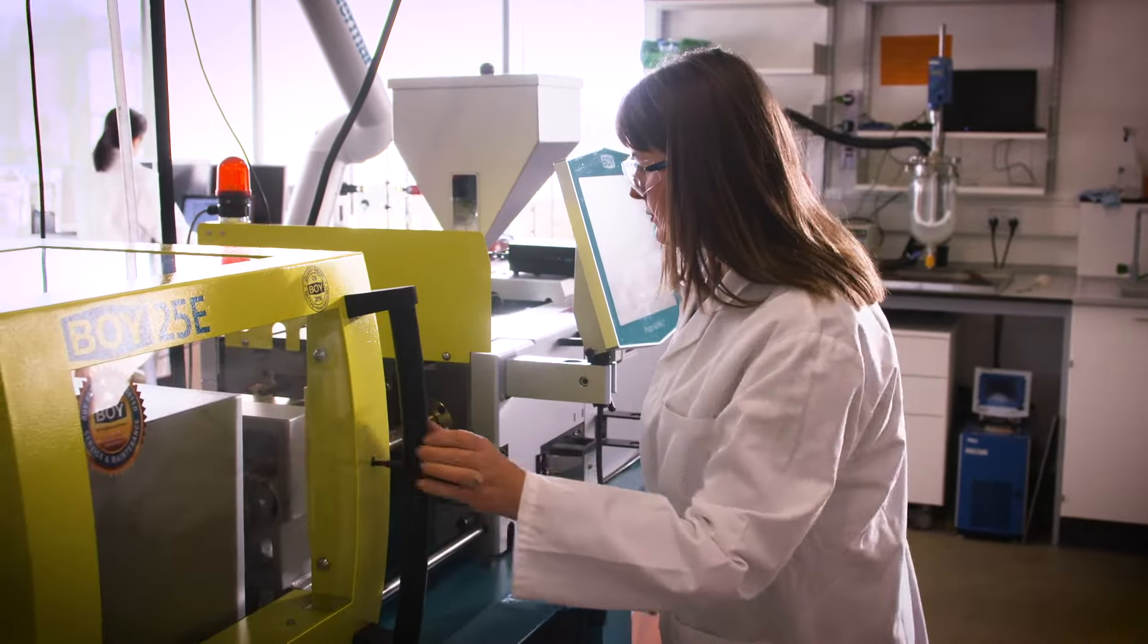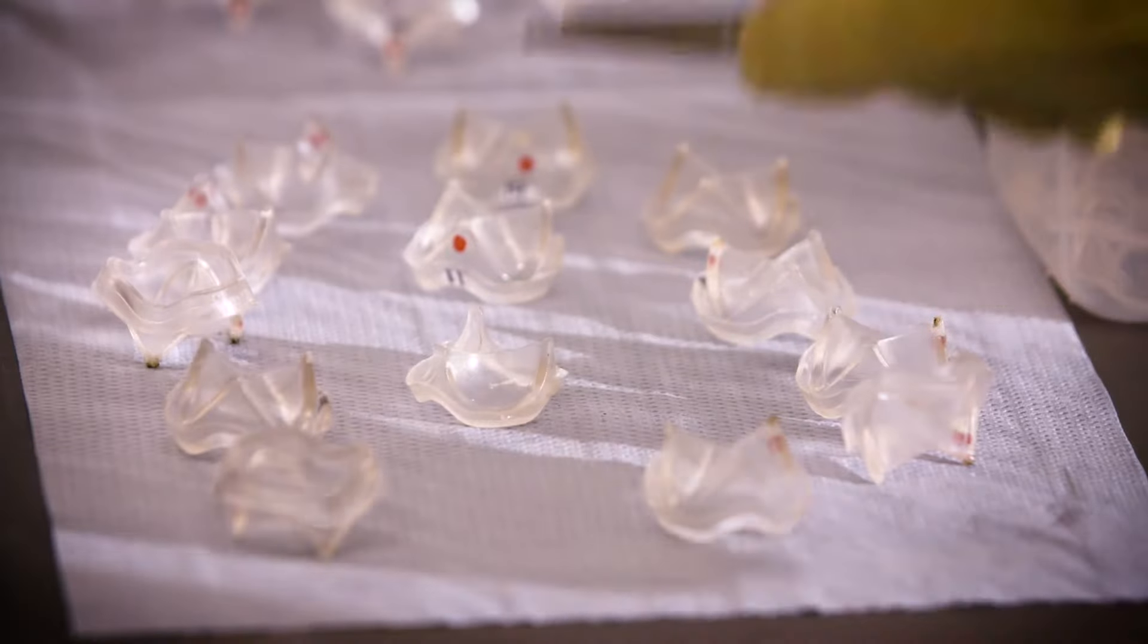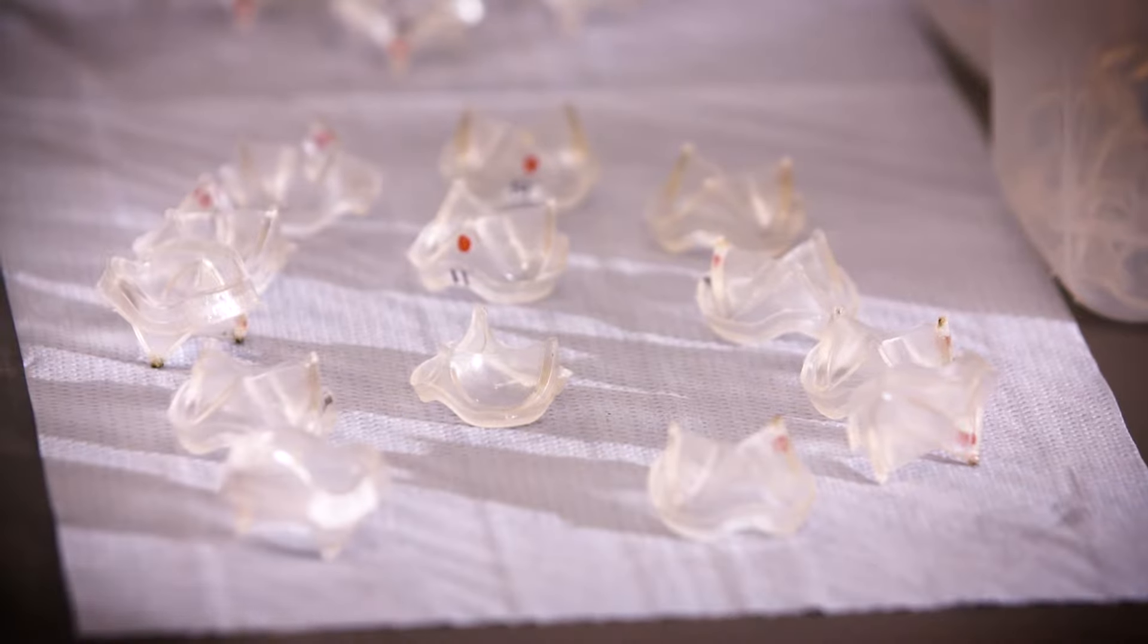What's novel about that is it's anisotropic—it's more stretchable in one direction than the other—and that is meant to provide a longer lasting valve.